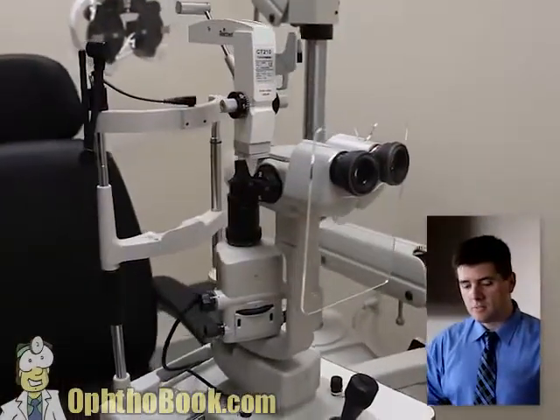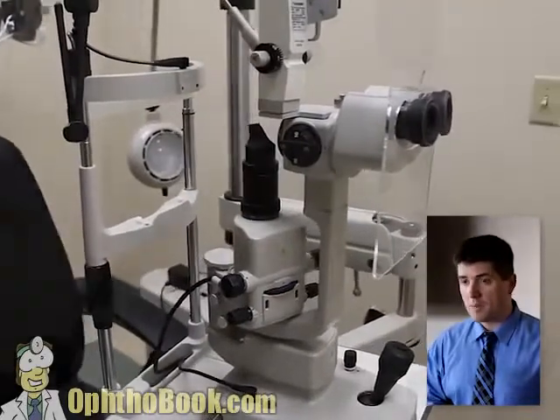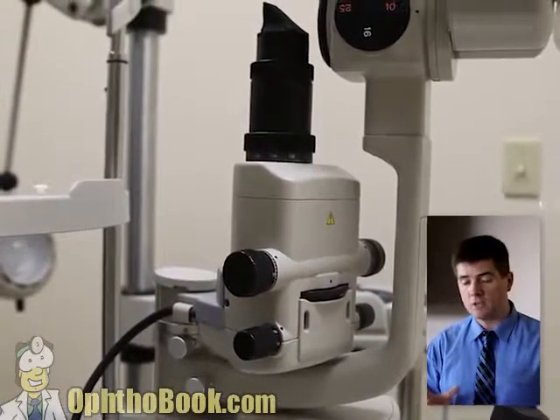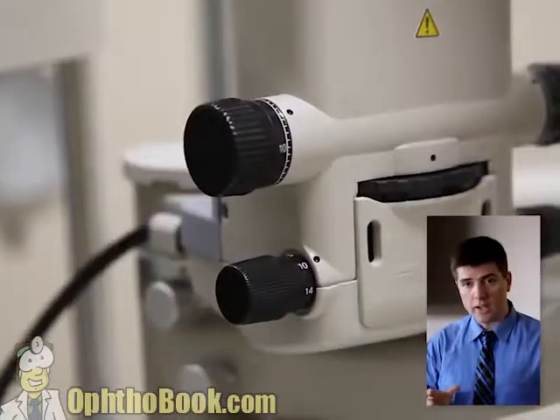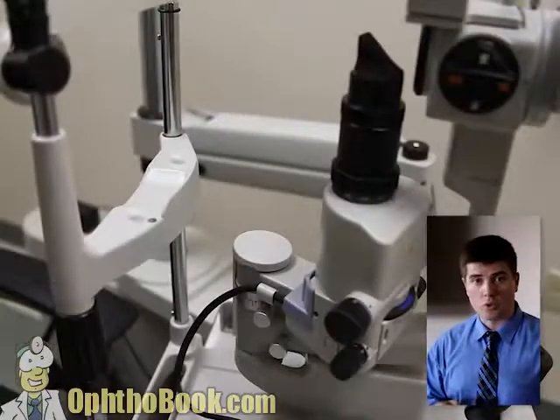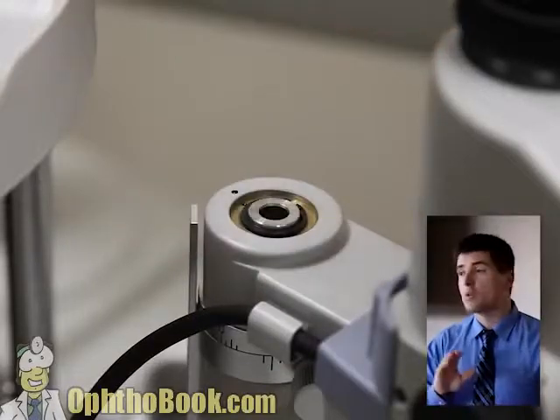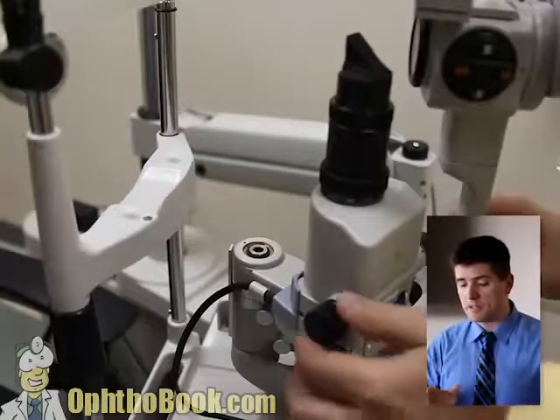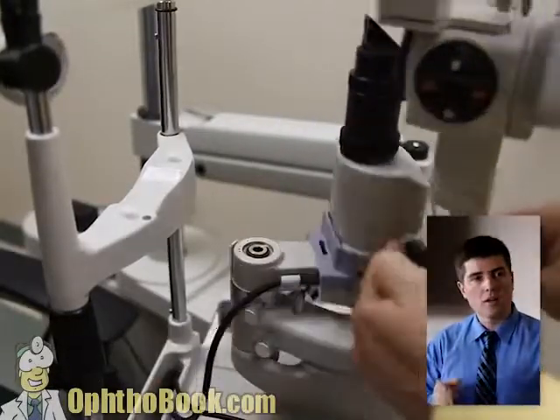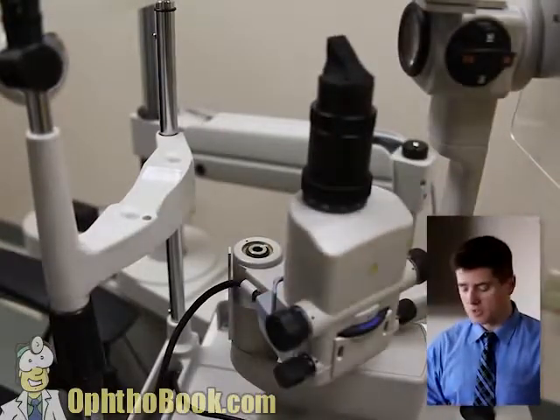This is the modern microscope we use in all of our clinics — this is a version by Topcon, but many other manufacturers are making this style. The light is down below, and all the controls are in one central location for controlling our light, our filters, and our various settings. No matter what microscope you use, they all have the same basic principle: a common rotational pivot point that they all work around in order to focus on the eye.